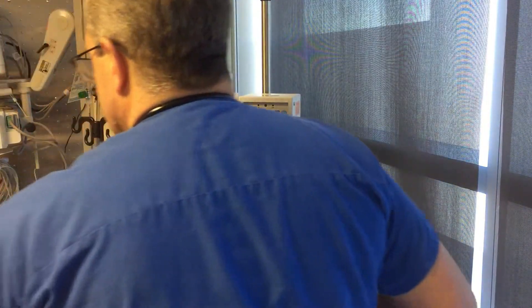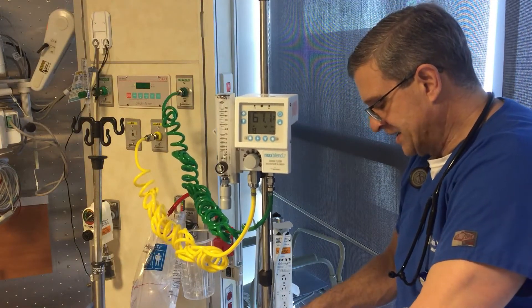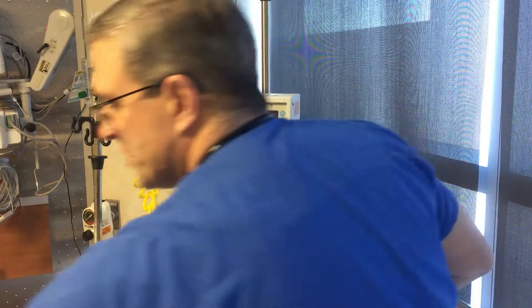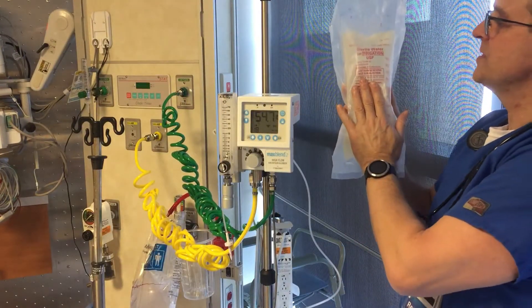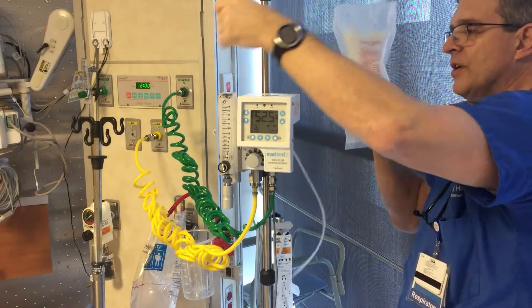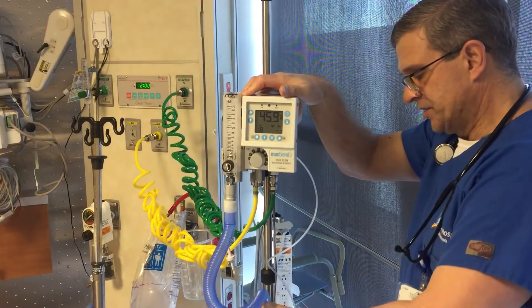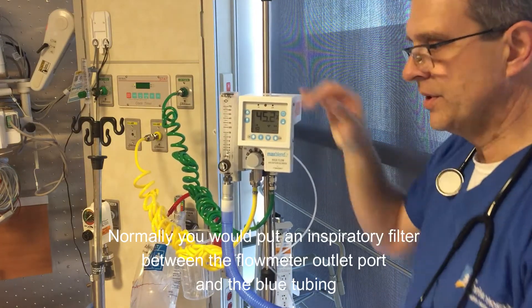Because this is so much dry gas, we need to humidify it. So I have a heated passover humidifier here. Normally we would use sterile water — we'd hang it, spike the bag, and that would drain into the water chamber on our heated passover humidifier. We're going to go from the outlet here down to the humidifier. It doesn't matter which port on the water chamber you use.